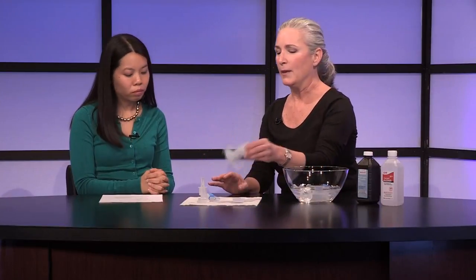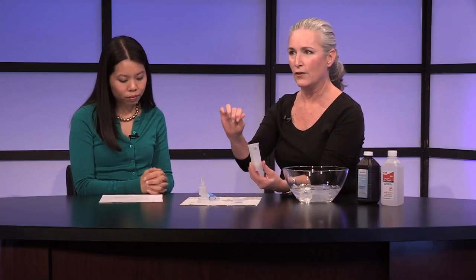A question I get a lot is: after disinfecting the nebulizer, if it's time for a treatment, do they have to wait until it's air dried first? The air drying step is important before you store the nebulizer, because if you store anything wet, it could cause germs to grow. But if you've cleaned and disinfected your nebulizer and it isn't quite dry yet but it's time for your treatment, you can go ahead and put your nebulizer together and take your treatment safely.